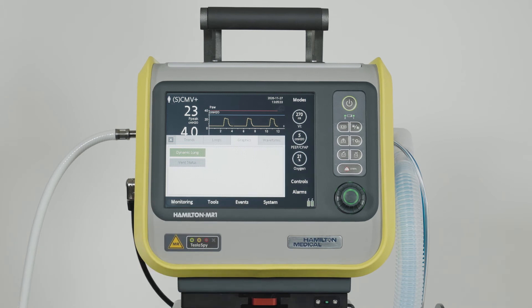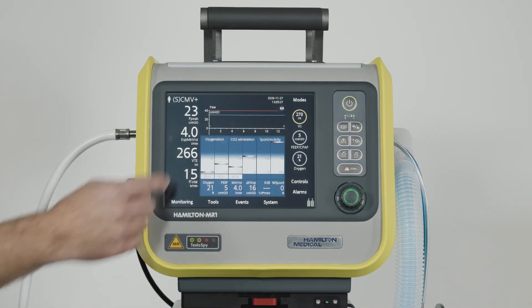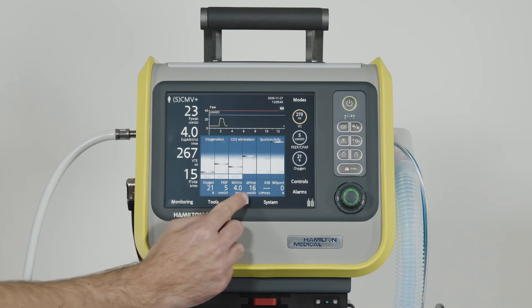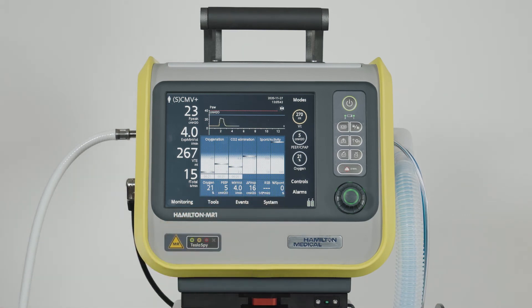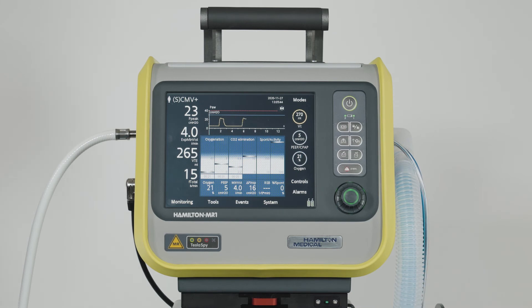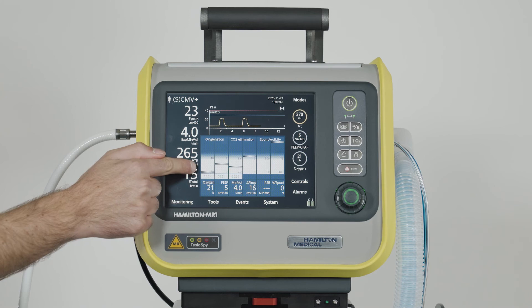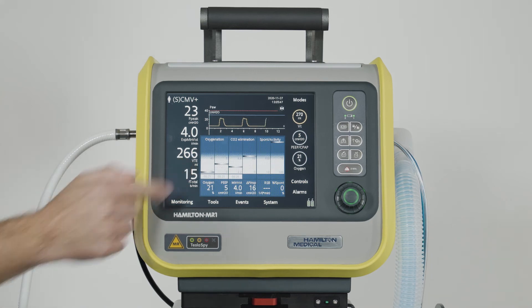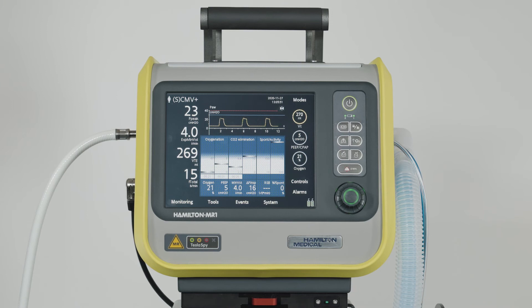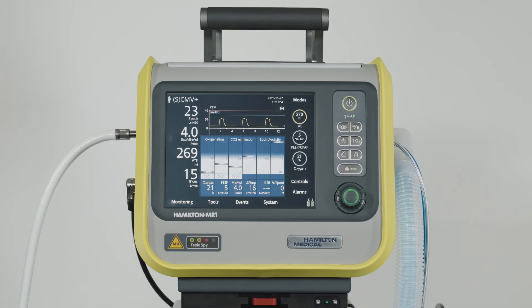You can also use the Vent Status panel to see how dependent the patient is on the ventilator. Six parameters relating to oxygenation, CO2 elimination, and the patient's breathing activity are displayed next to one another. Each parameter has a floating indicator that moves up and down as the value for that parameter changes. Both panels are available in all ventilation modes.